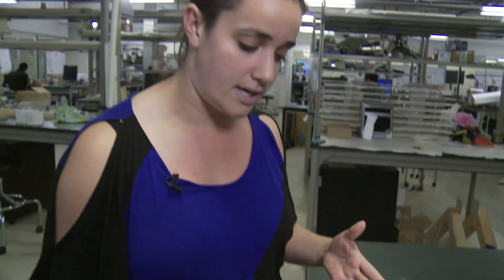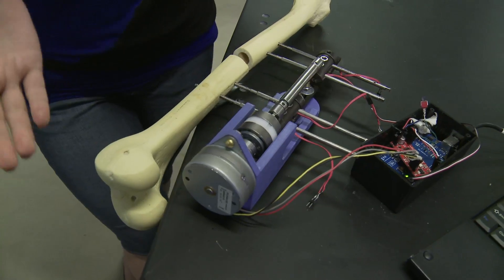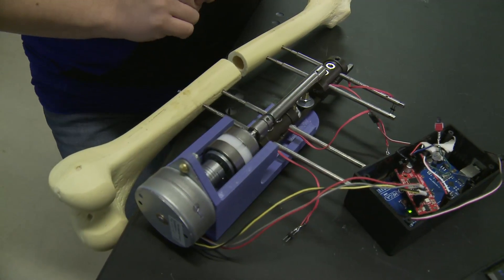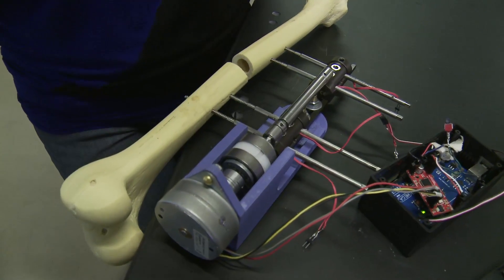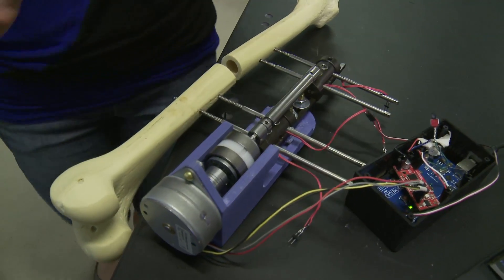So what we've done is we've created an automated device that uses these components that they use already but added some extra parts to basically improve the process so it goes faster and will take less time and cost less money for the patient, for the patient's insurance, and for the hospital as well.